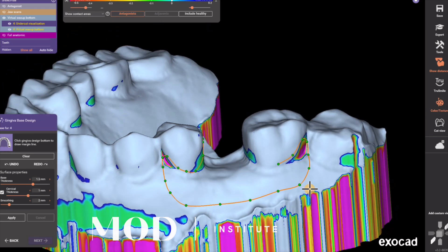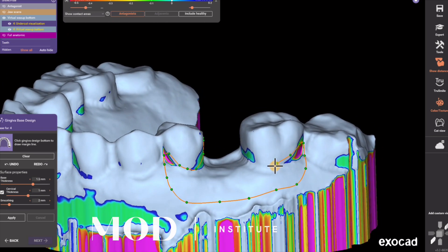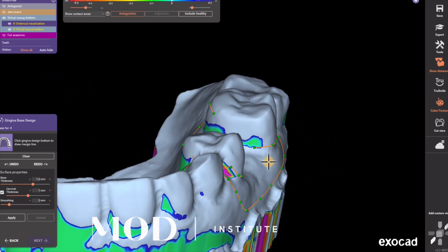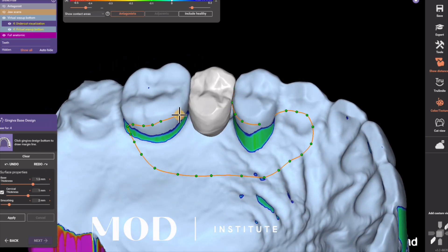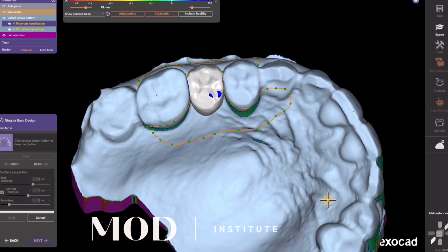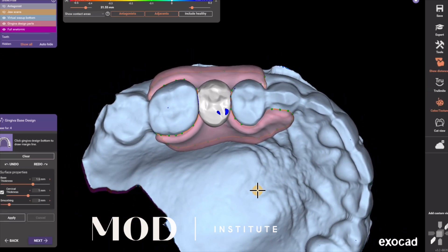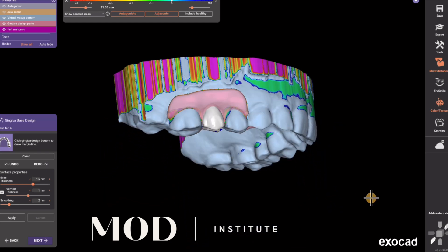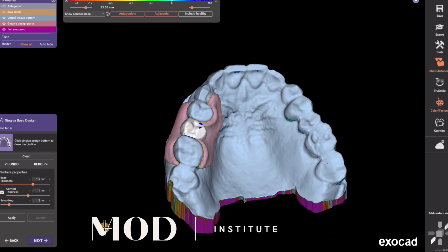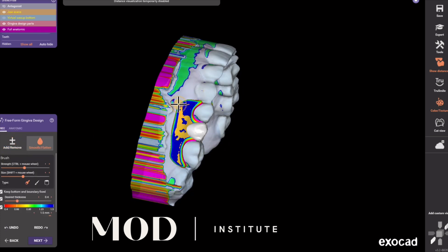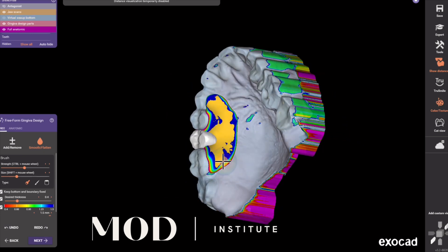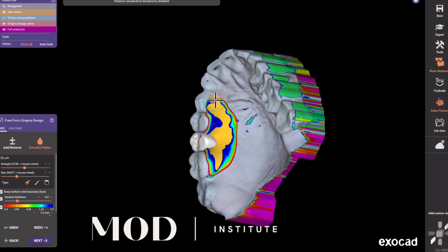This patient sees that tooth when she smiles, so I wanted to hide the clasp a little bit — more towards the CEJ of the tooth instead of being halfway up on the tooth, which would be visibly apparent when she smiled. Get back to that original dot and double click. The slider for material thickness needs to be 1.5 millimeters, which you can see on the bottom left. Once you have your tissue the way you want it, hit next. Optionally, you can free form your soft tissue and festoon. I like to go to the smooth tool and smooth the clasp tip and smooth the border, with keep bottom boundary fixed selected so you're not distorting your margin line.